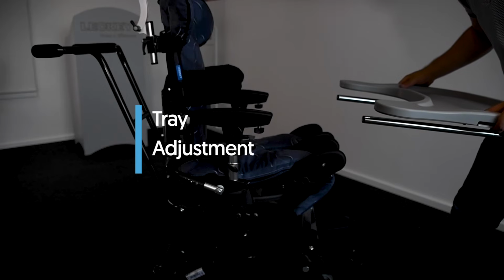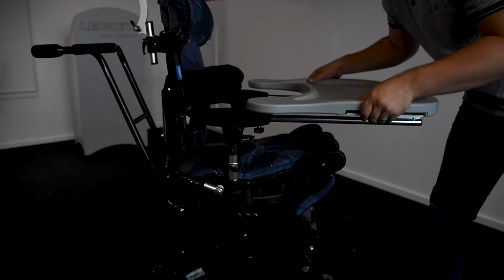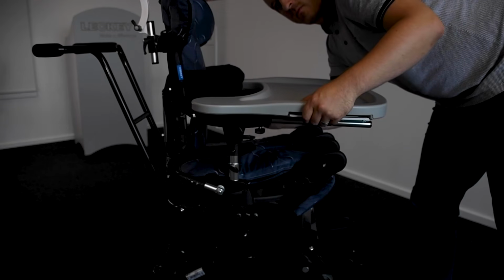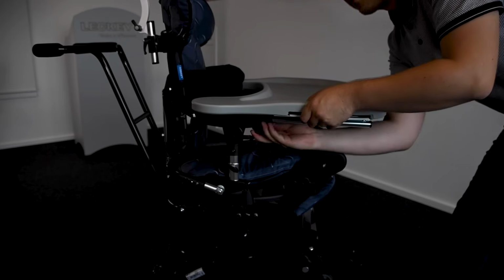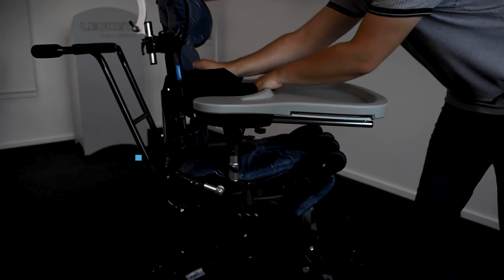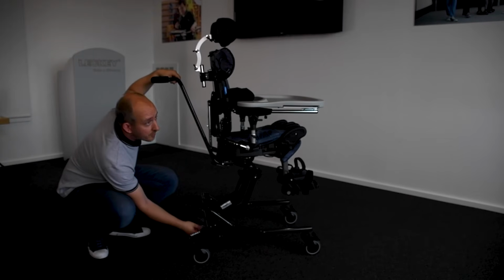Tray adjustment. The height and angle of the tray is set by adjusting the armrests as shown previously. To remove or adjust the depth of the tray, loosen the knobs under the armrest, set to the desired position, and retighten securely. Height adjustment, high-low chassis.